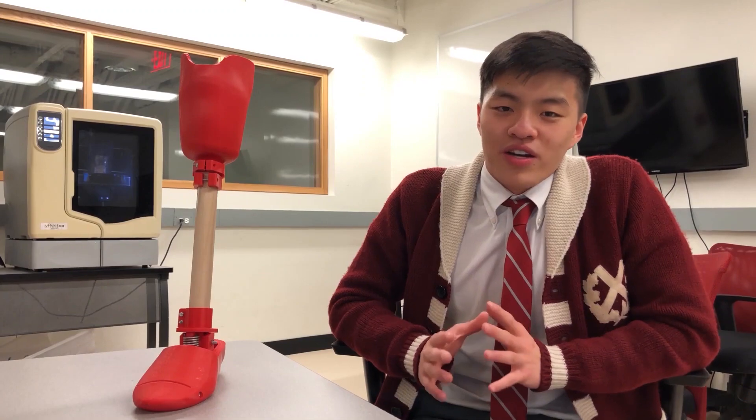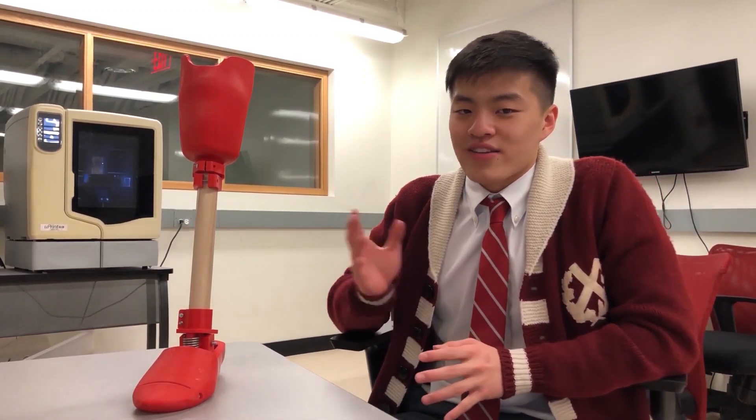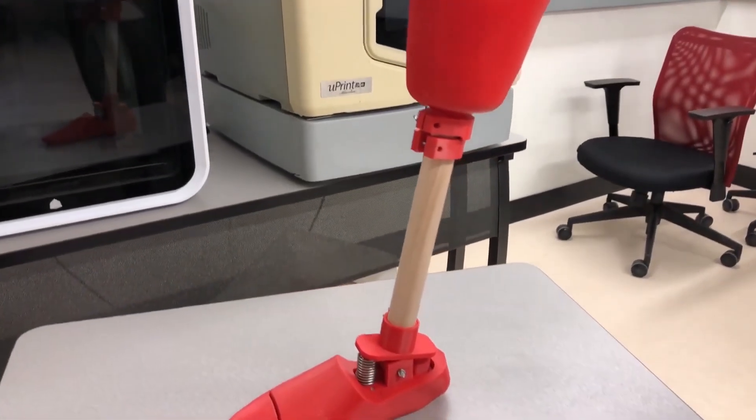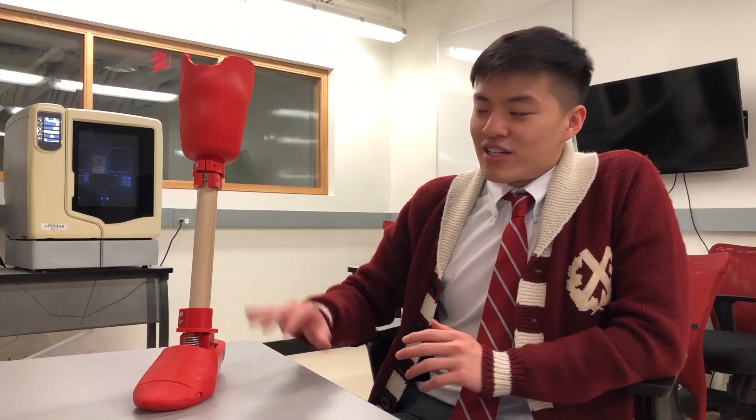In creating the final product for this prototype, we will be enhancing certain qualities of the leg such as aesthetic, strength, and comfort. For aesthetics, additional 3D printed covers will be added to conceal the working parts of the prosthetic.